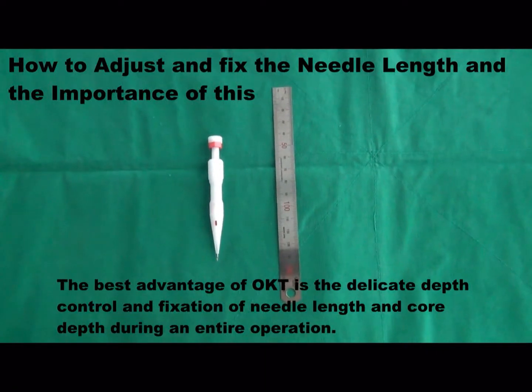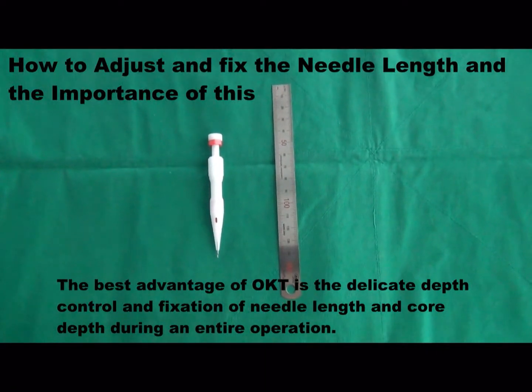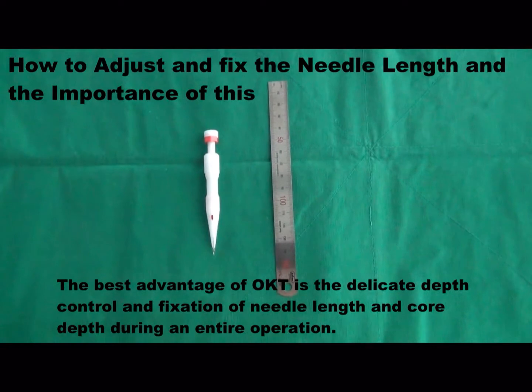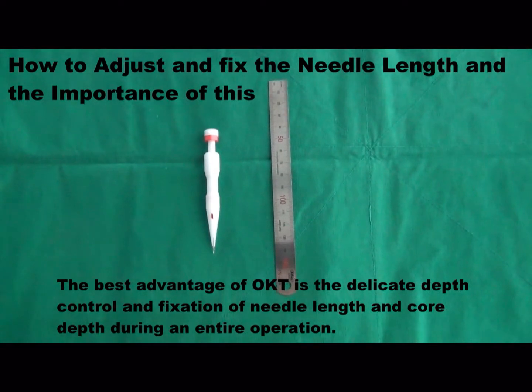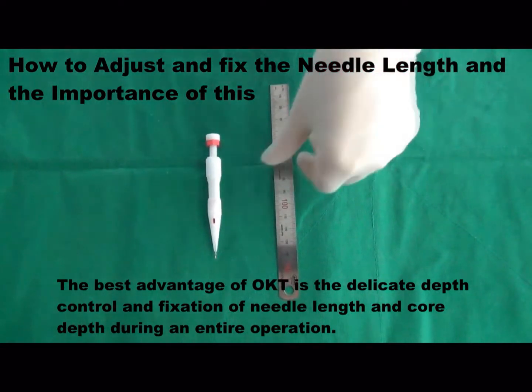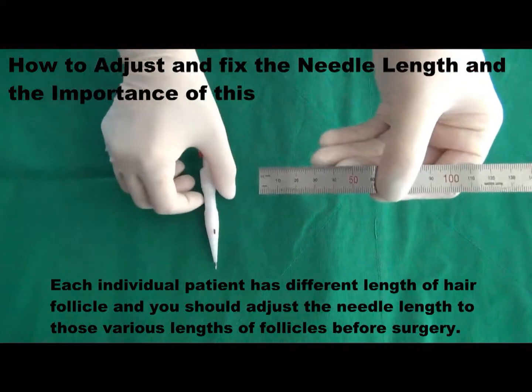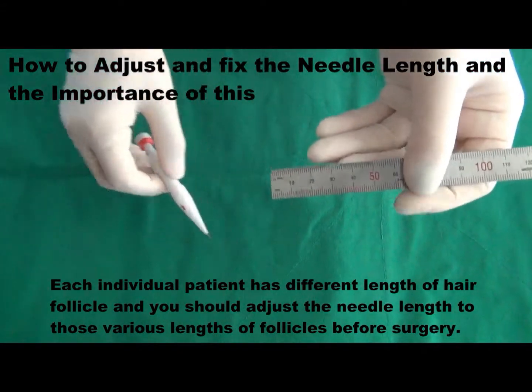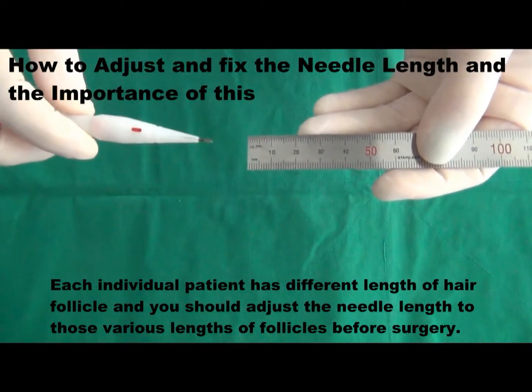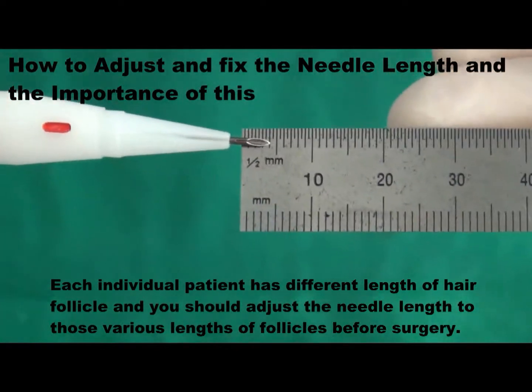The best advantage of OKT is the delicate depth control and fixation of needle length and core depth during an entire operation. Each individual patient has different lengths of hair follicle, and you should adjust the needle length to those various lengths of follicles before surgery.